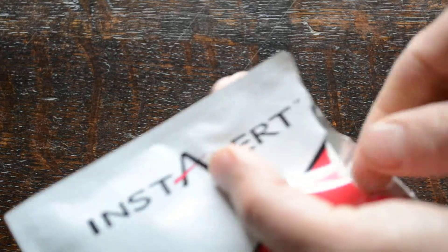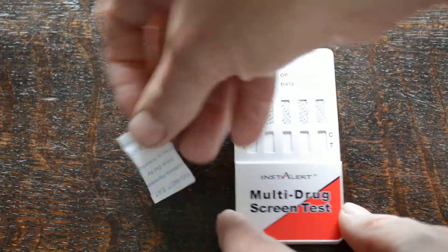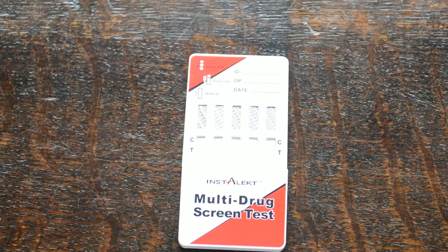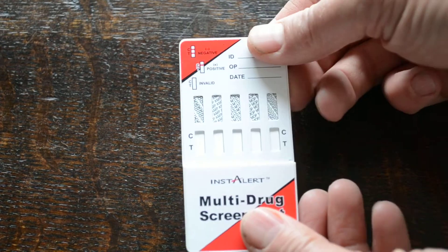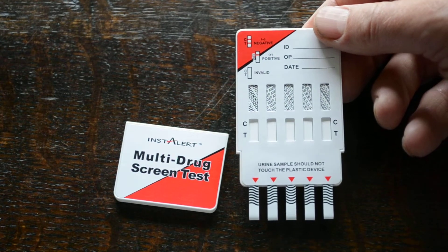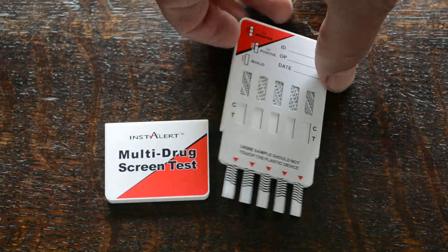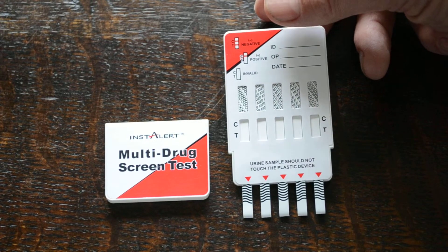It is a five panel, as we say. If we open this up and show you the pack contents: a bag of desiccant which keeps the test membranes dry and in perfect condition until you're ready to use it. Here we have the standard Instalert 5 panel red panel with cover. Take the cover off and you see the five prongs for the individual drug groups, with codings in this window here — standard universal coding.